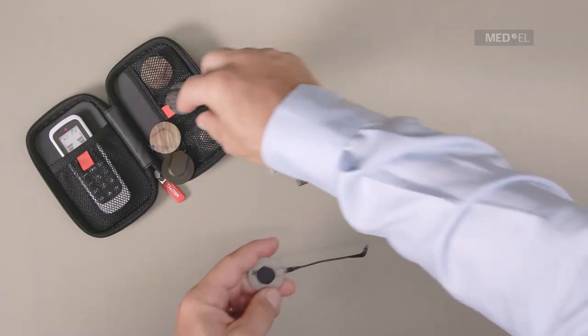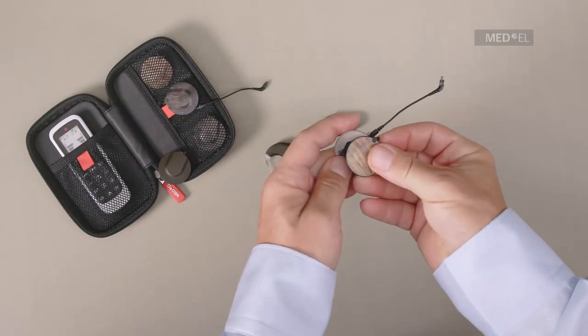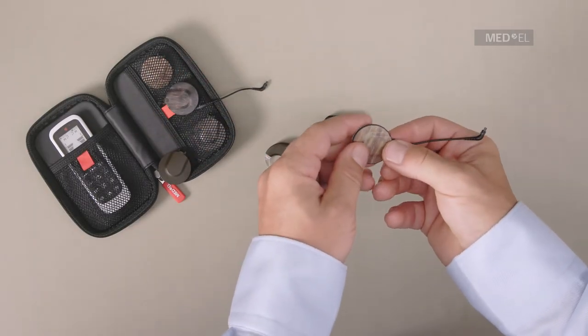Place the coil cover over the base and gently press together until they snap into position.